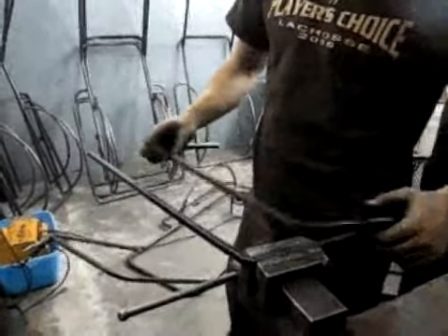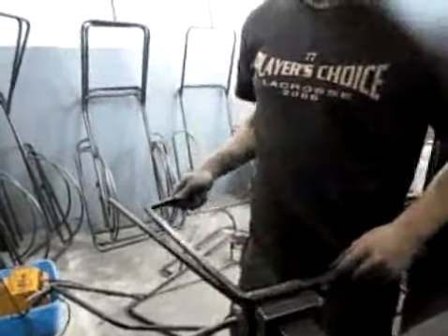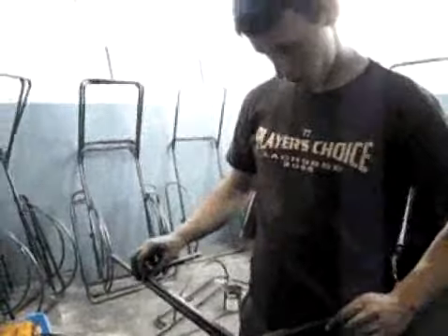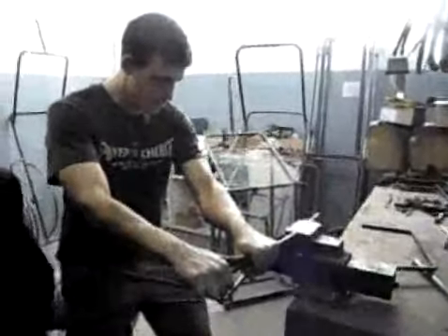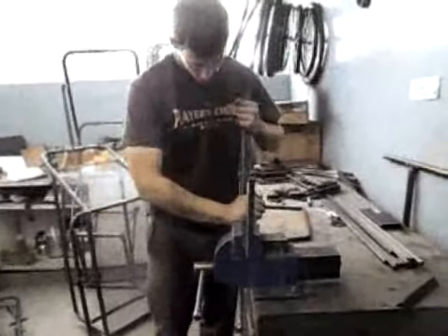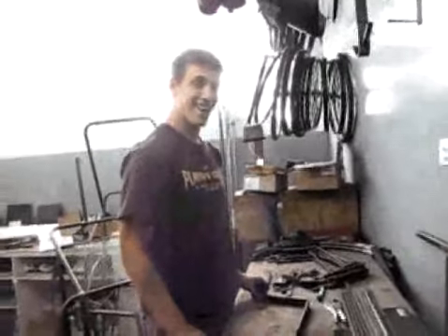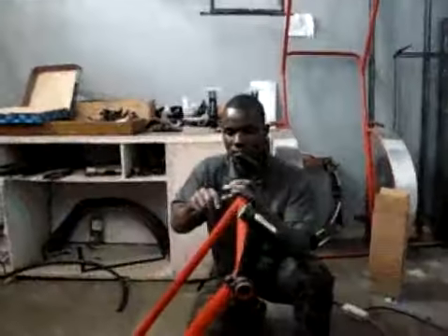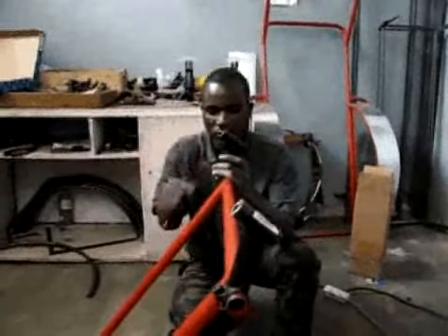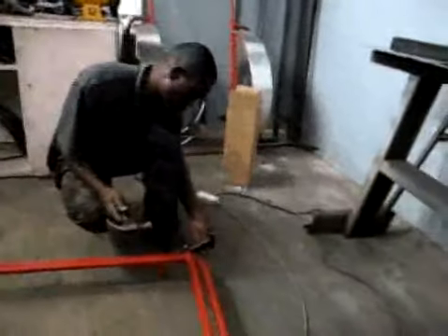The canopy is created from a 12mm square tube. The bent ends are held apart by straight lengths of the same material. The ends can be bent in a vise slowly to prevent cracking of the bends. A template should be used to ensure accurate bending. After bending, reshape into one plane if necessary and check against the template once again. Weld these canopy parts together and weld nuts onto one end of the canopy. Weld the other end to bicycle stems while they are attached to the backrest. This part is not removable, but the force required to pivot the canopy is adjustable with the bolts.